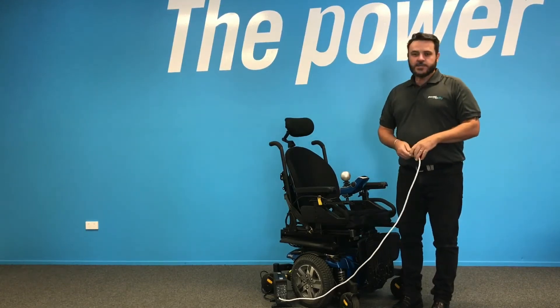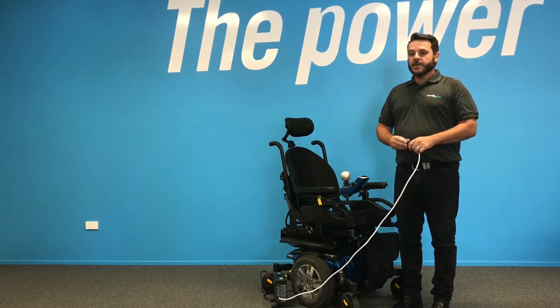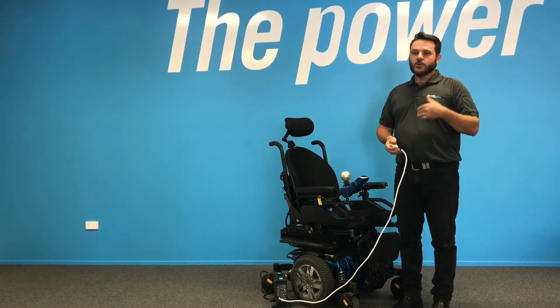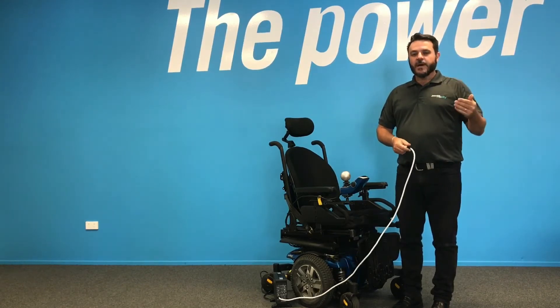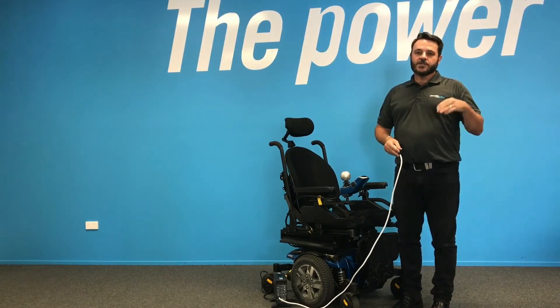With the new battery chargers, you can't actually overcharge your batteries in a short period of time, but you can certainly undercharge them. Avoid depleting your batteries completely or below 80% of their actual life, as this will lessen the life of the battery and also mean that you could run the risk of being caught without enough charge to get home.